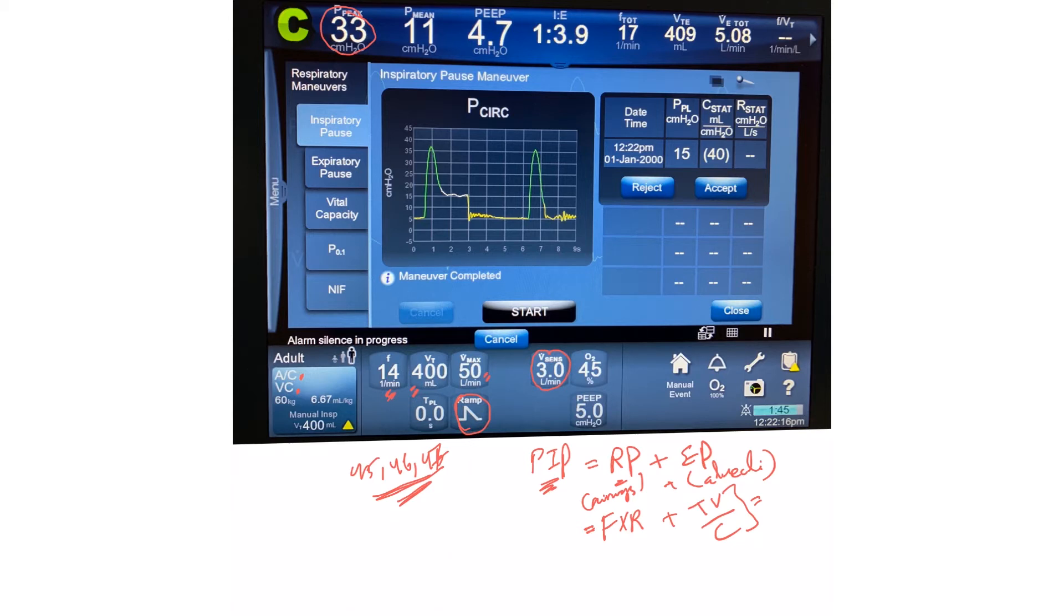So what we did here was simply perform an inspiratory pause or hold maneuver. It's a simple button you can easily find, or you can ask a respiratory therapist to guide you.